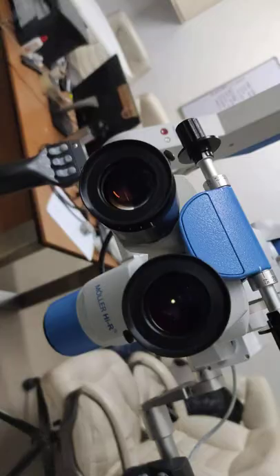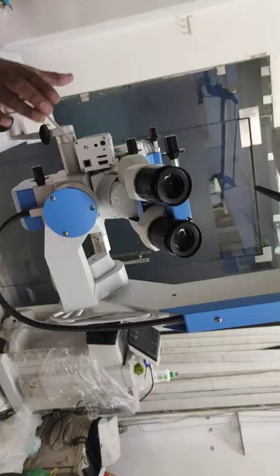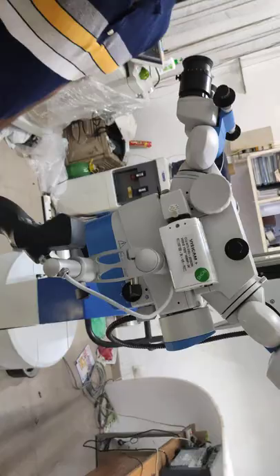These are the main optics. Face-to-face optics are also present, making it easy to use for spine surgery. This is the recording system provided with this unit — you can purchase it optionally at an additional cost.